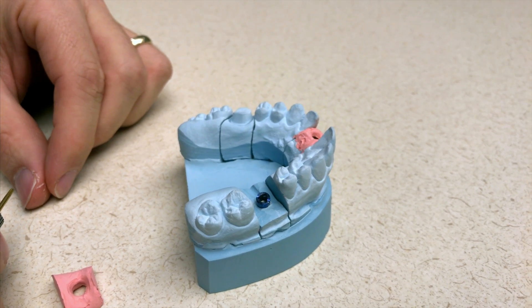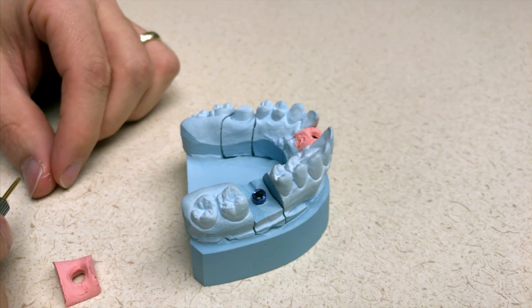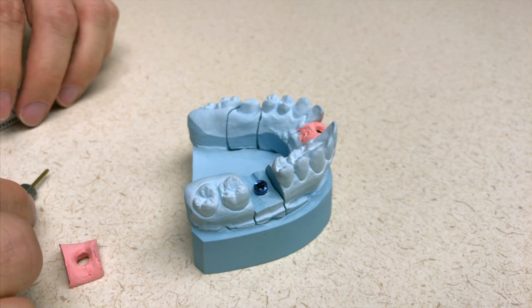Double check — it's blue, so we know we're having a 5.0. That's what's nice about Nobel: it's color coded.